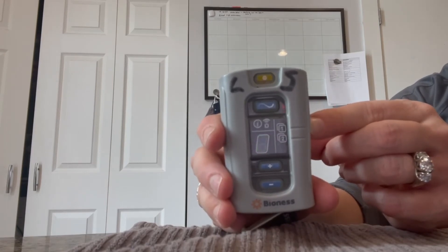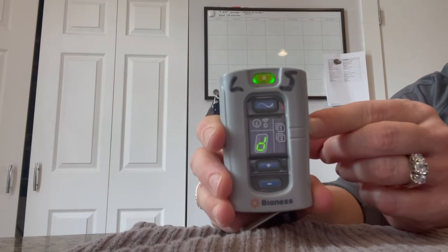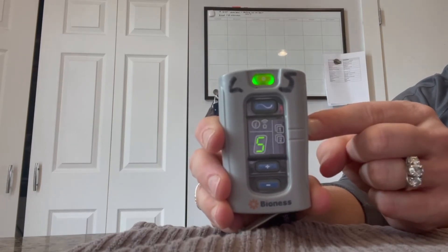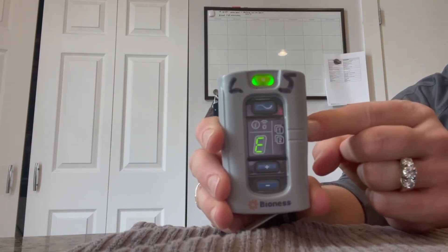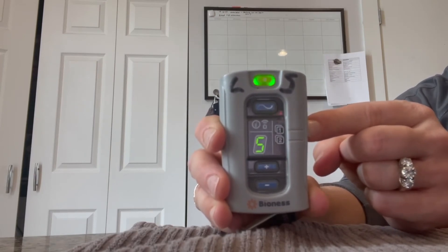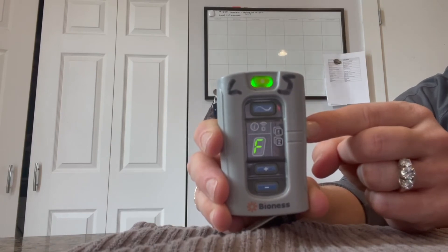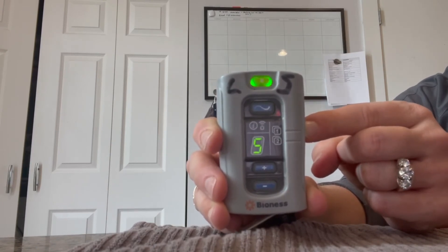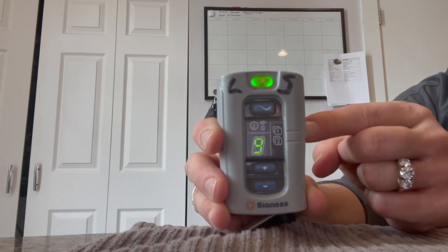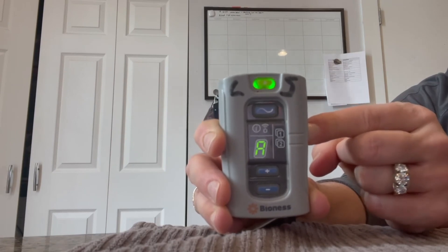which indicates functional training, grasp. D is neural prosthesis, grasp, and release. E is neural prosthesis, open hand. F is neural prosthesis, key grip. And lastly is G, which is neuromodulation. If I hit it again, we will restart with letter A.